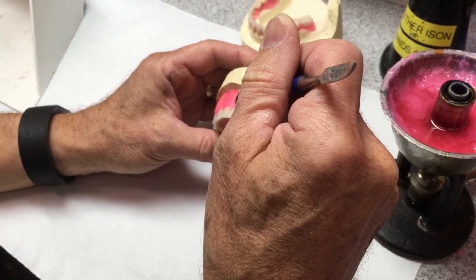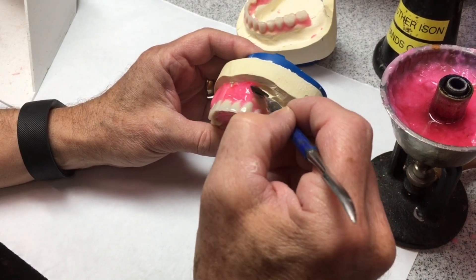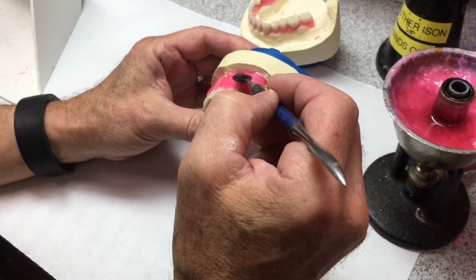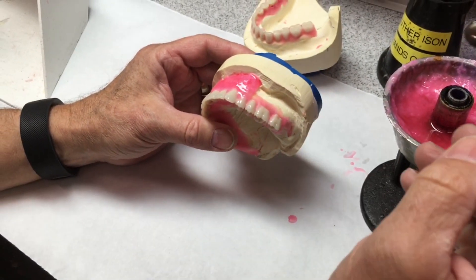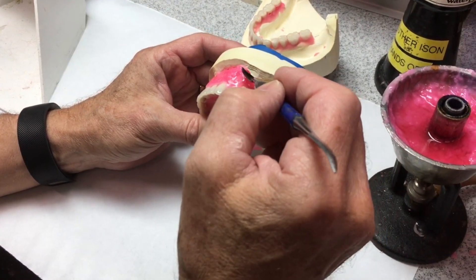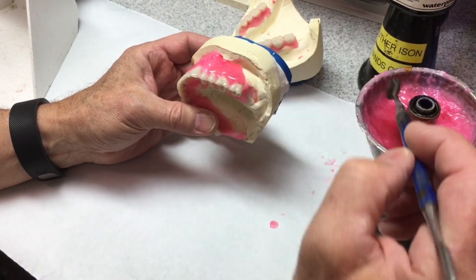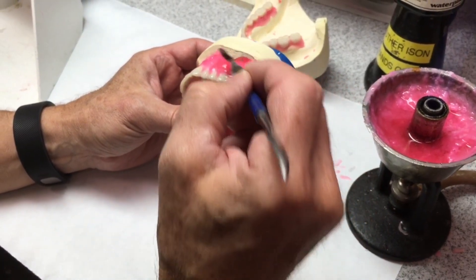If this was not an immediate, then there would be a base plate underneath there, probably. But in this case, I'm waxing right against the stone cast. With some melted wax, I'm able to just apply it here as long as I can keep it at the right consistency and not be running all over the place. I can add it fairly quickly. Otherwise, you can take a sheet of wax, soften it over the flame, and apply it and then try to melt it. But as I've got a wax pot of melted wax here already, I can just apply it this way.